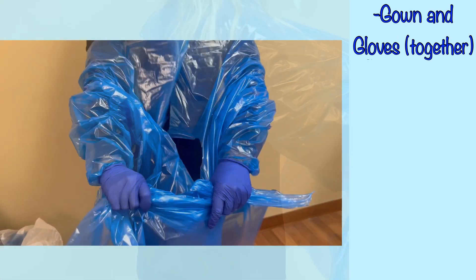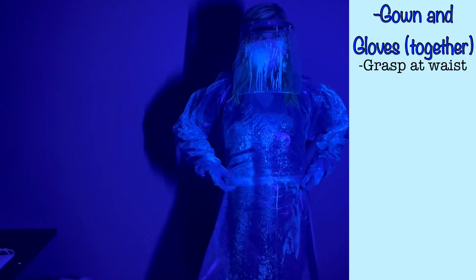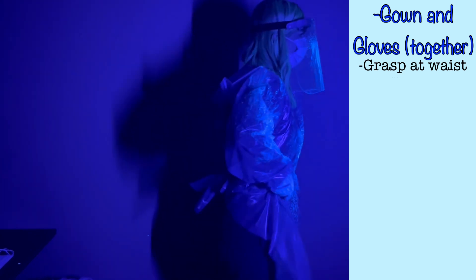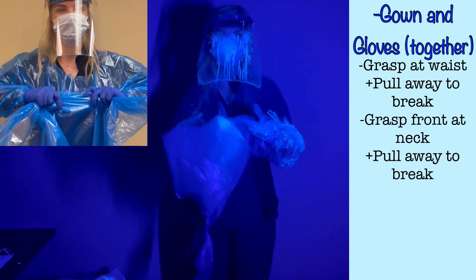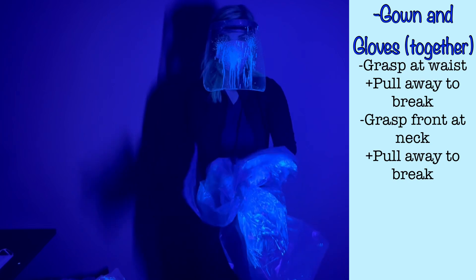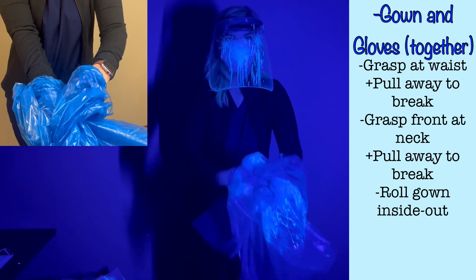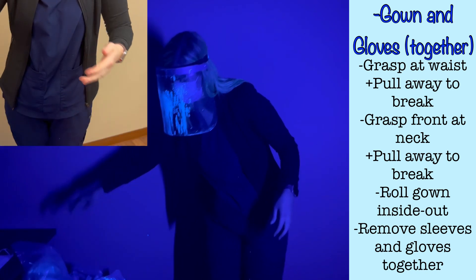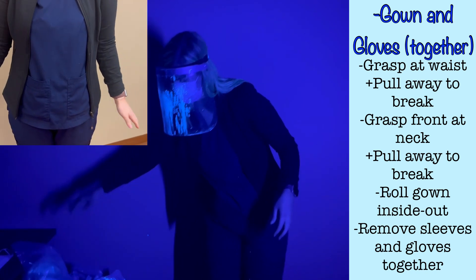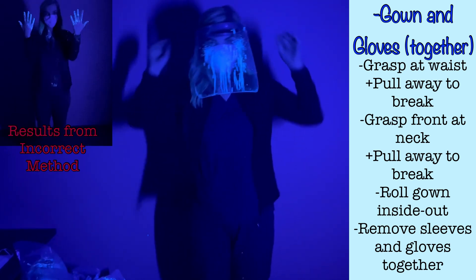The appropriate method is to utilize the tear-away aspect of this gown and remove the gloves in the same motion as you remove the gown. First, with your still-gloved hands, grasp the front of the gown at the waist at the same level as the ties that tie in the back. Pull away until you feel those ties break. Then grasp the front of the gown near the neck, and pull away until the gown tears away from your neck. The gown is now detached from your body. Fold or roll the gown so that only the uncontaminated inner surface is exposed. Pull the gown down over your arms and hands. Because the gloves were donned over the sleeves of the gown, the gloves will be removed and turned inside out as you remove the gown. If you performed this step correctly, you have doffed the gown and gloves and remain free of contamination.